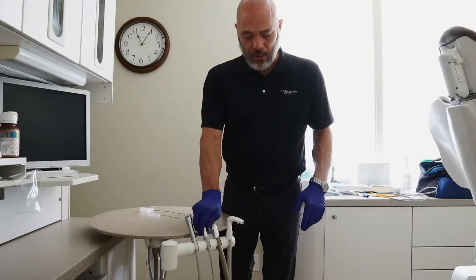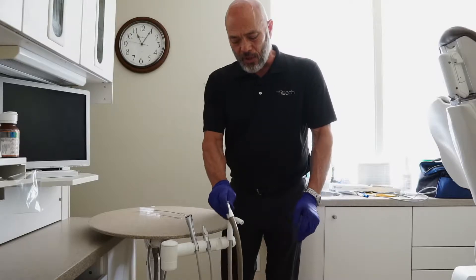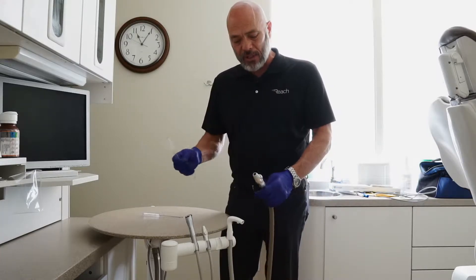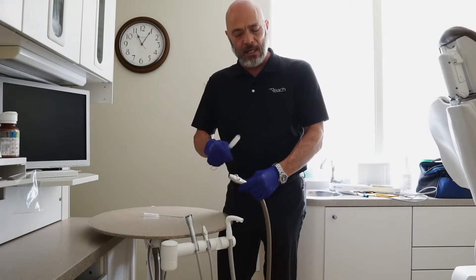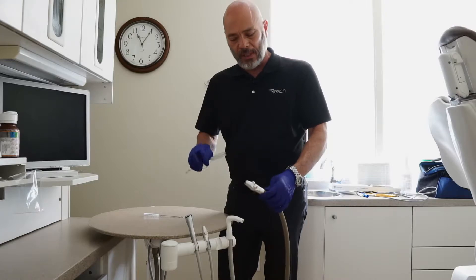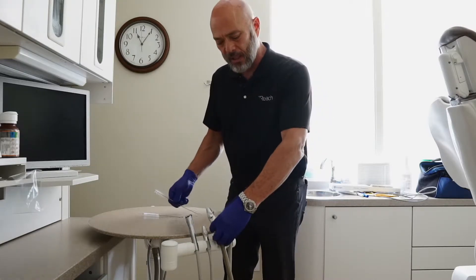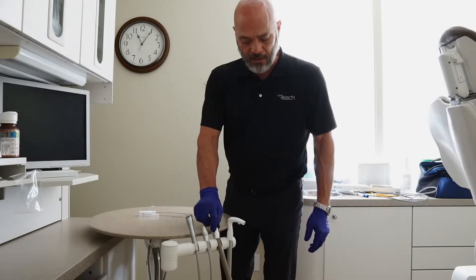In your operatory, you have your saliva ejector and your high-volume valves. Those can easily be cleaned with brushes and disassembled. We have other Reach Tips that cover how to maintain these — you use your brushes, clean them out, take them apart, ultrasonic, etc. There's another tips video that covers all that.